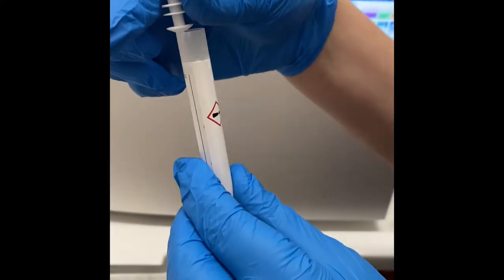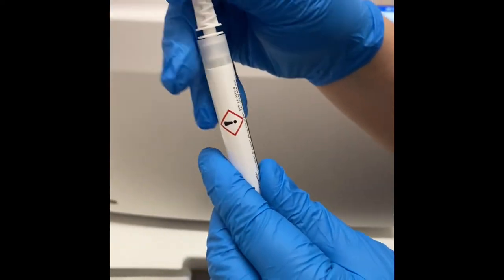Place the swab back in the tube and firmly click the tube down.